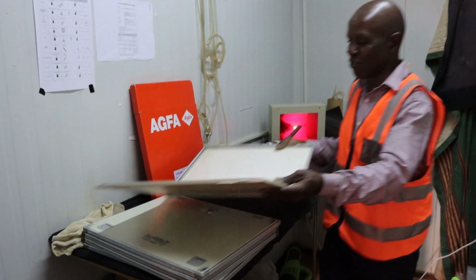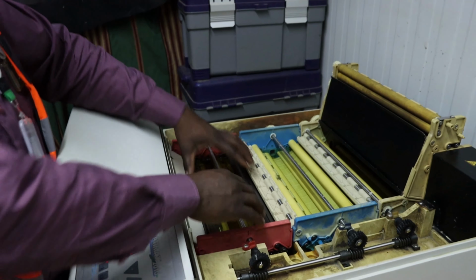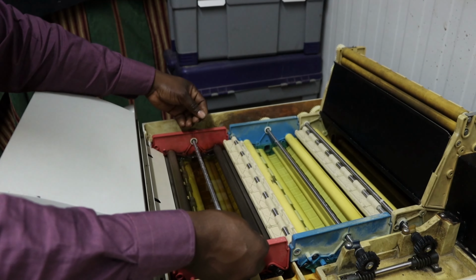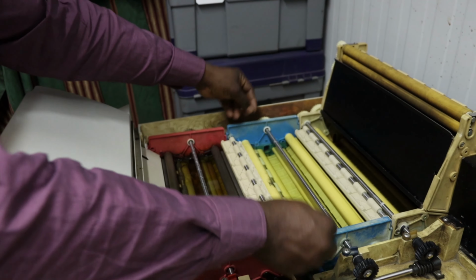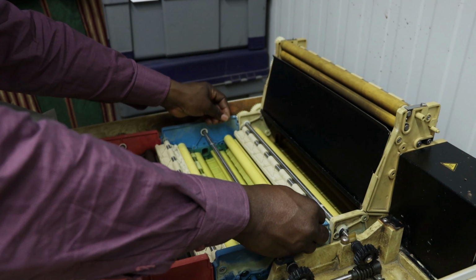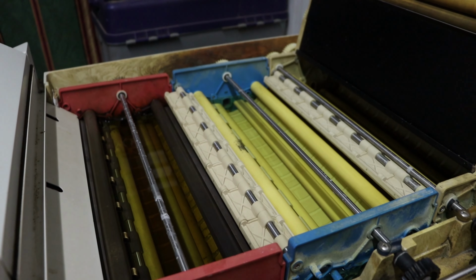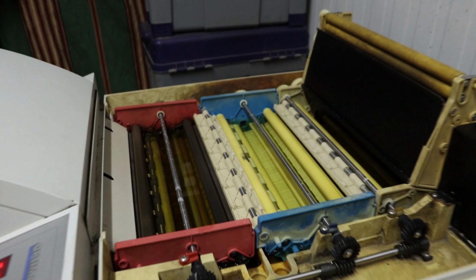After learning how a film is processed, let's get to know how the printer works. When the film enters, it will enter this section, which is the developer. From the developer, there are some rollers that will squeeze off the excess developer from the film. It goes into the fixer. As it moves out of the fixer, there are some rollers that will squeeze off the excess fixer. Then it goes to that side, there's water, which is the wash. From the wash, there are some rollers again that will squeeze off a bit of the water. Then it will come to the dryer. So it will come out dry.